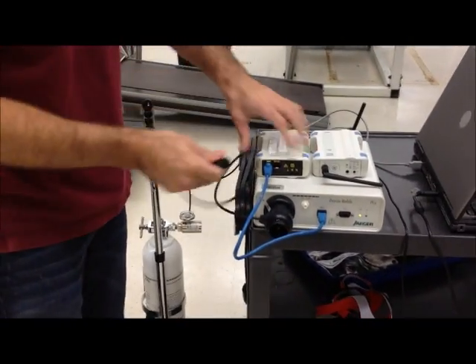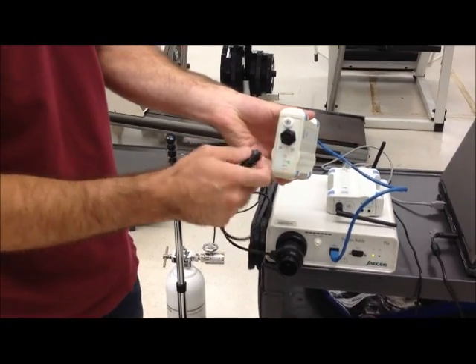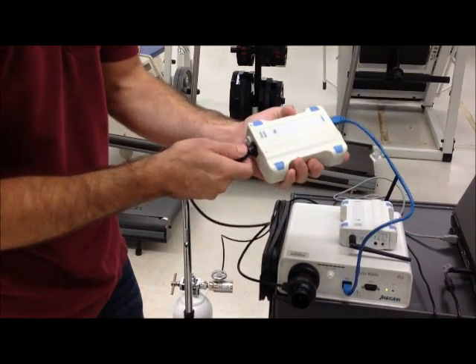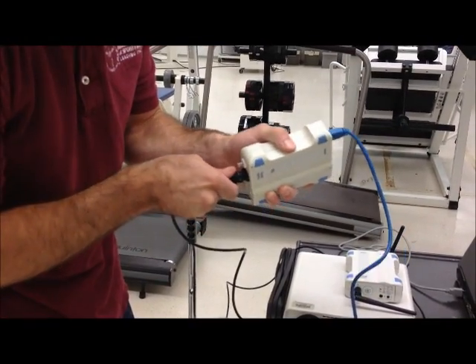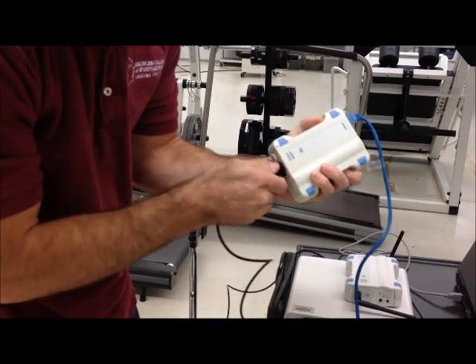And then this side is going to go into the port on the wireless unit. That should just screw on nicely.